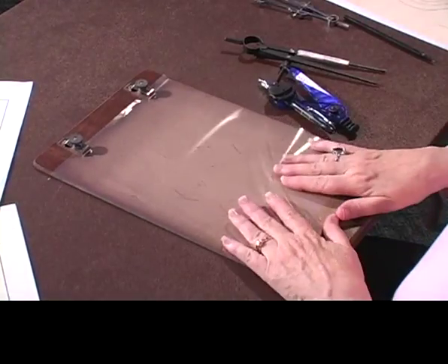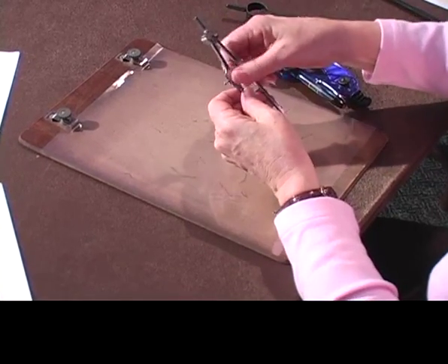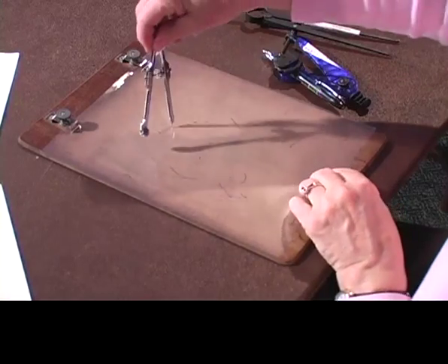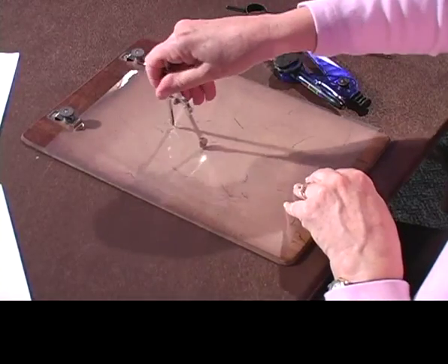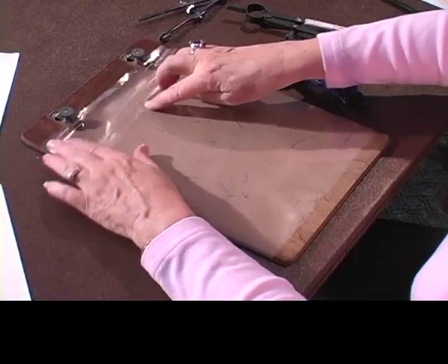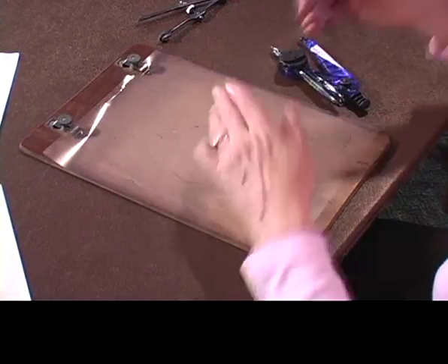Let's see what happens if we use that. We'll try the different compasses and see what we get. I'm not going to do too much right now, just try some different things. Now what's supposed to happen is you're supposed to be able to feel what you write on this side, but I'm not feeling that. Let me try it on this one.